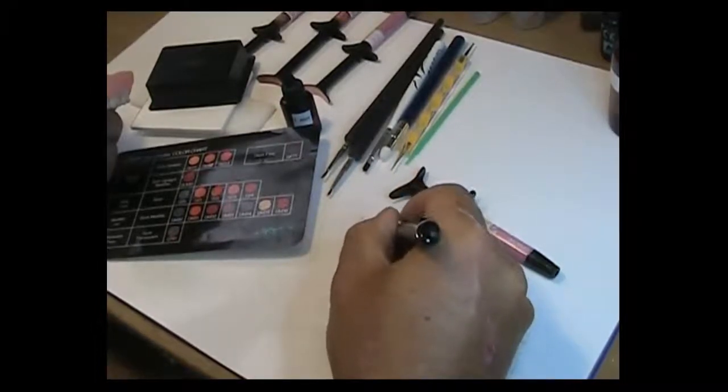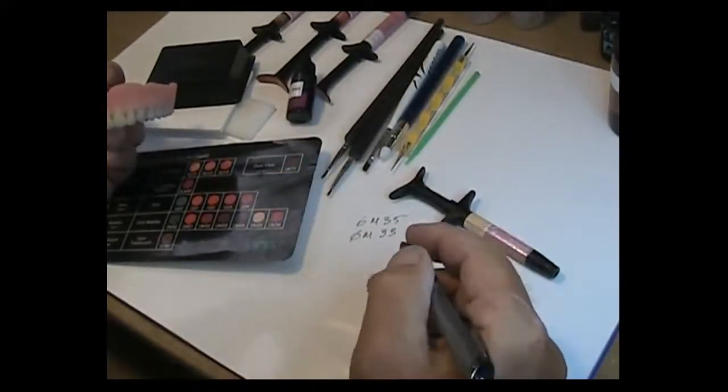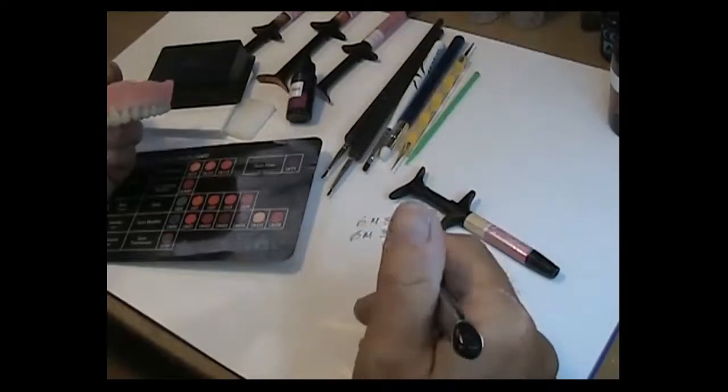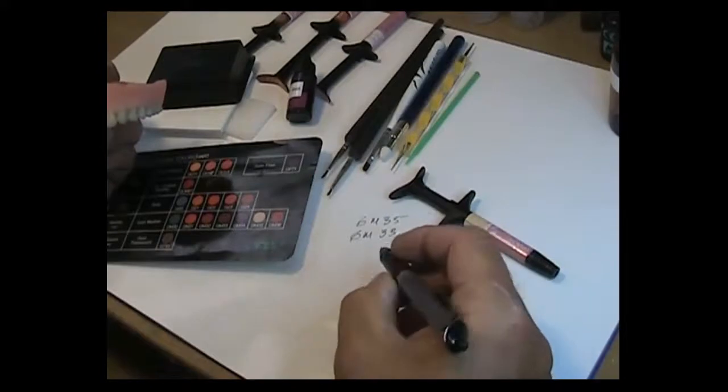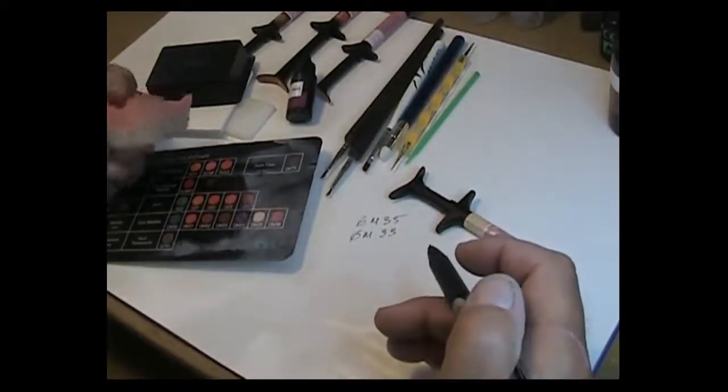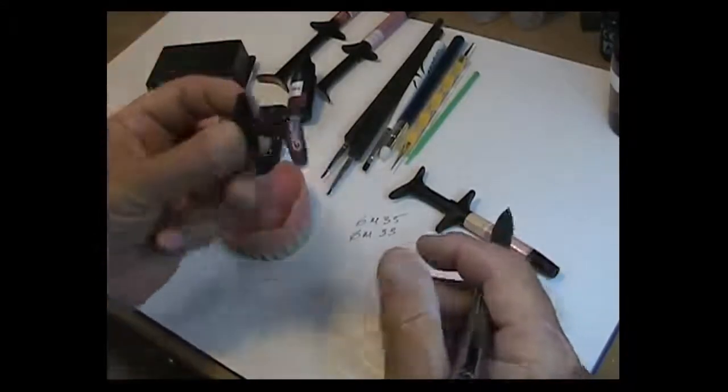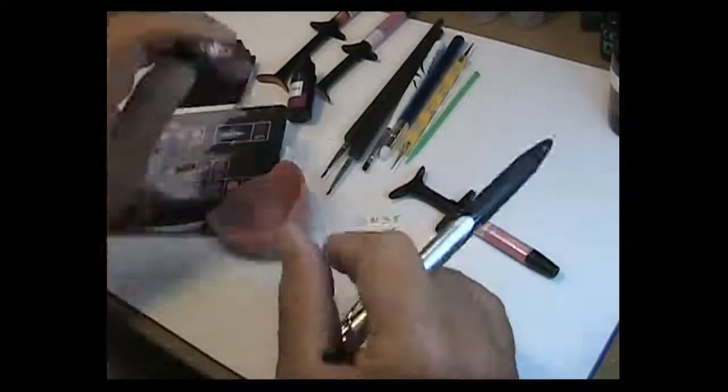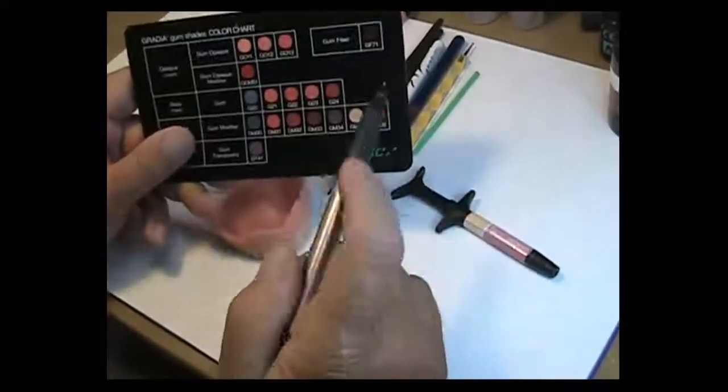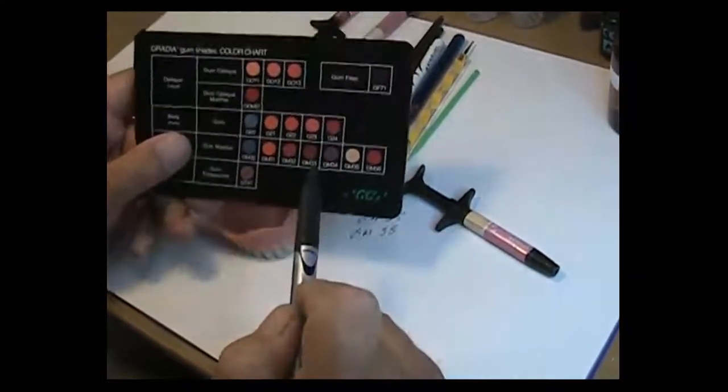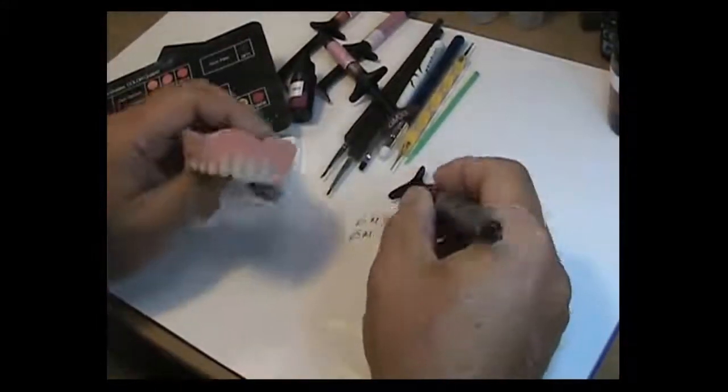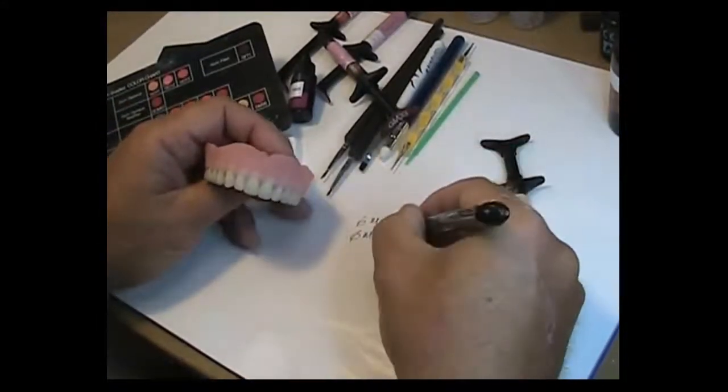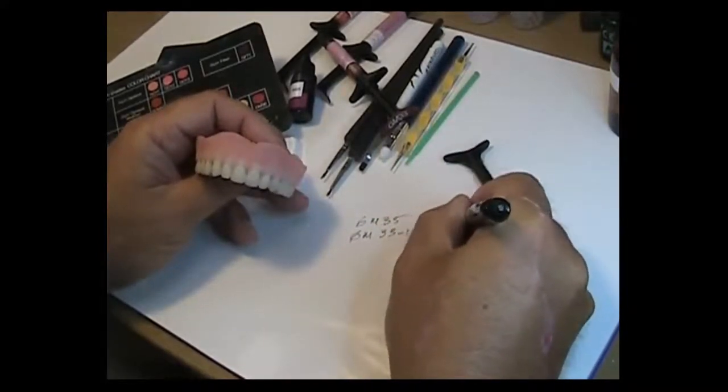Then I recommend GM 33. GM 33 is your, it's a purplish, yeah purple would be the best way to put it. Although purple is kind of tough to, you know, there are different grades of purple. This is more of a like I would call a vascular style purple. I don't know if you can see that range but it's almost like a plum I guess would be the best way to describe it. So GM 33 and where GM 33 goes is in areas where you want to show depth of tissue.